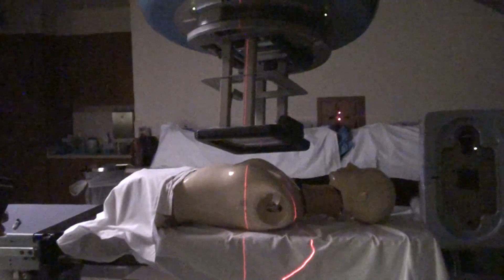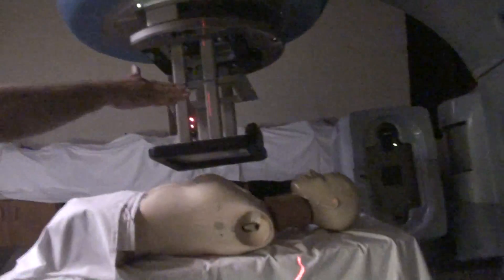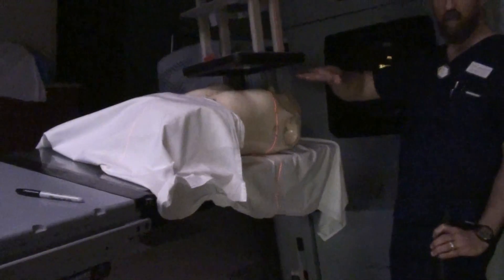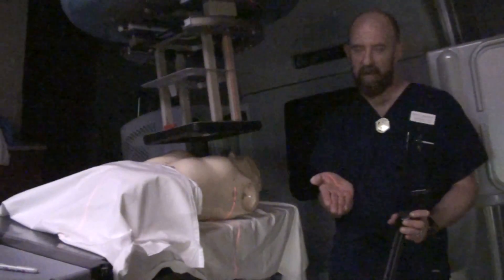Your two match lines are set up. I have the gantry angled to demonstrate the detail of our illustration. This shows what we're doing. If we have the gantry angled, in order to come in a little bit with that electron field, you're basically trying to get up underneath that tangent field.